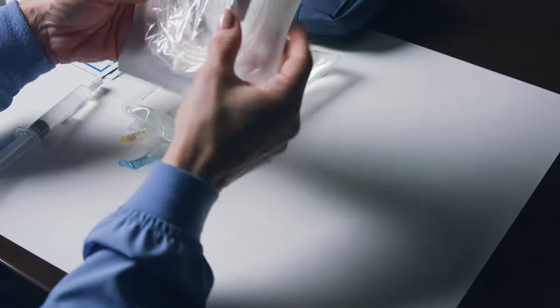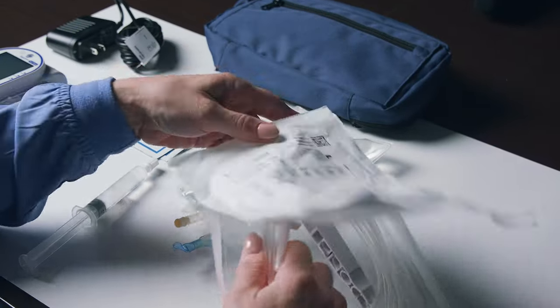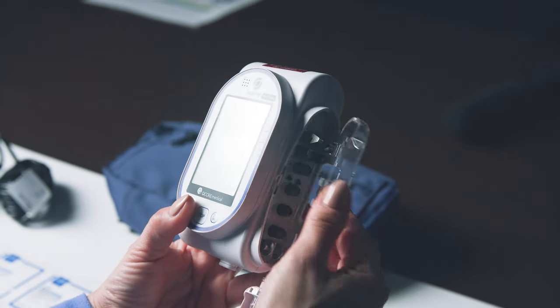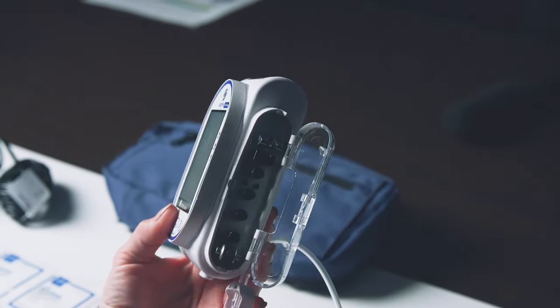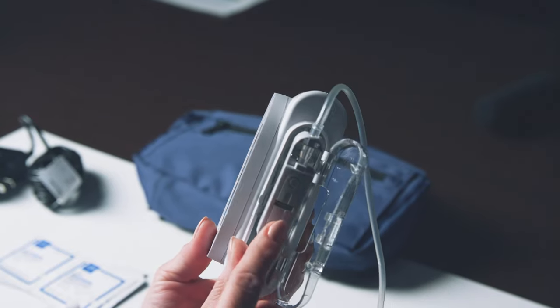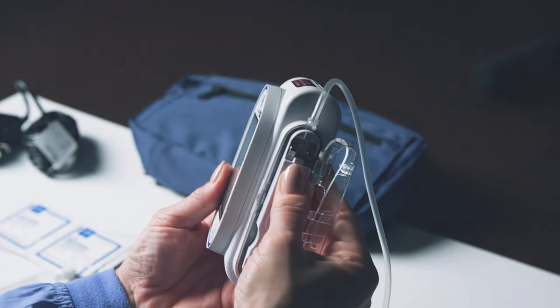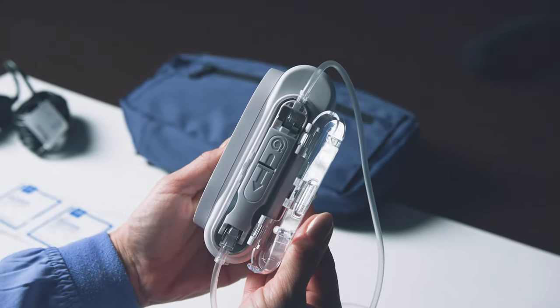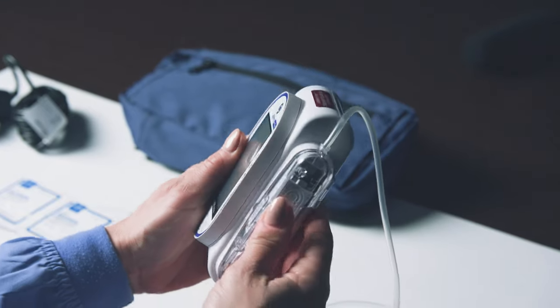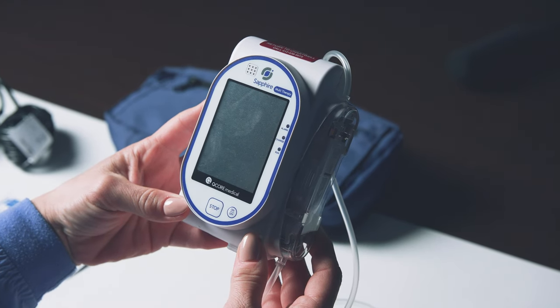Remove your Sapphire tubing from its packaging. Insert the IV tubing administration cassette at an angle by placing the saddle in first onto the round metal pegs at the bottom of the cassette's housing. Make sure the arrow on the cassette is pointing down towards the bottom of the pump where the on/off button is located. Press the cassette into the cassette housing by hinging it inward until it clicks in place. Then close the safety door, ensuring it clicks closed.